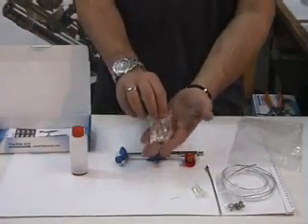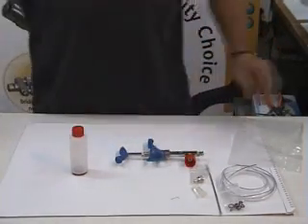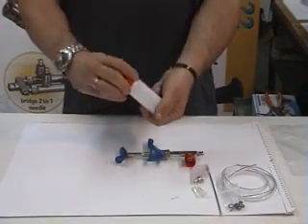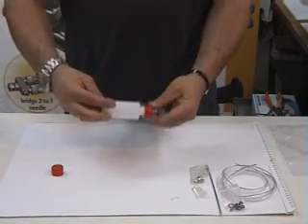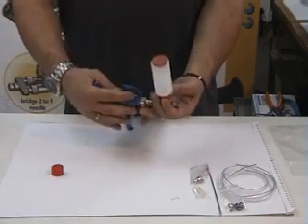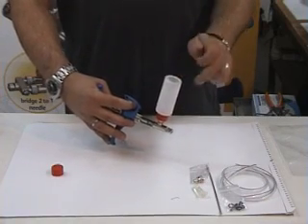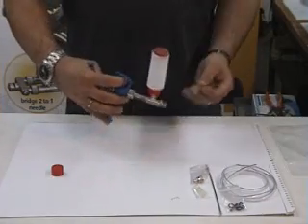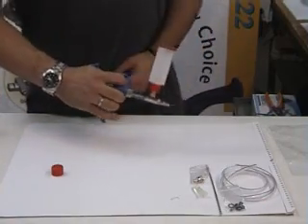In addition, you will have here the tube adapter. To use the syringe is very easy. This is the feeding bottle, you just open the plug here and connect it to the syringe like that, hold the plug here, and now it's very easy to refill the vaccine from here, to attach any kind of needle and then you can work.